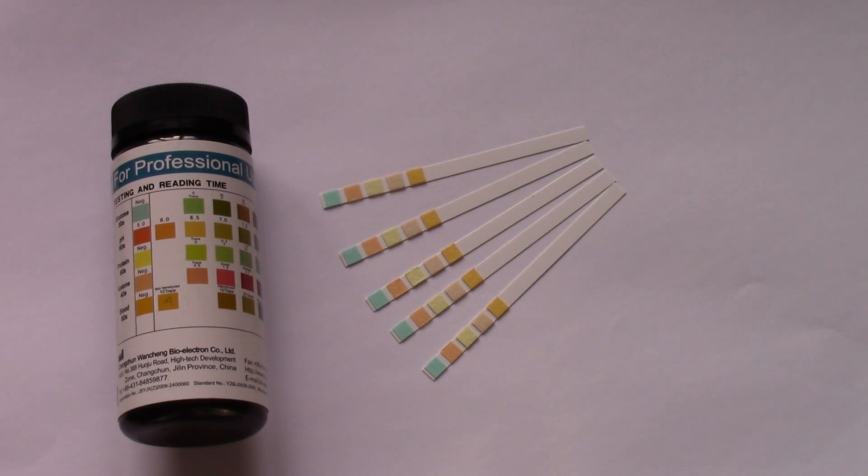Proteinuria or protein in the urine should normally not be detectable at all in healthy kidneys and healthy individuals. So these tests are a great screen for kidney disease by just looking for the presence of protein.